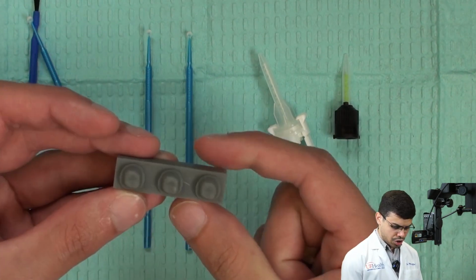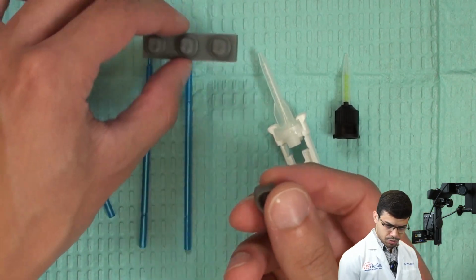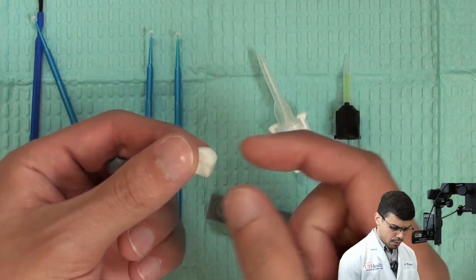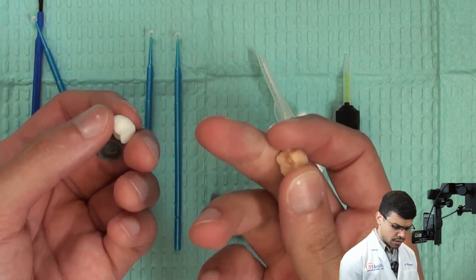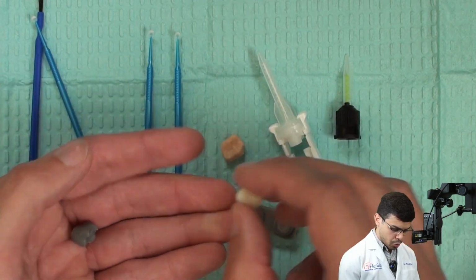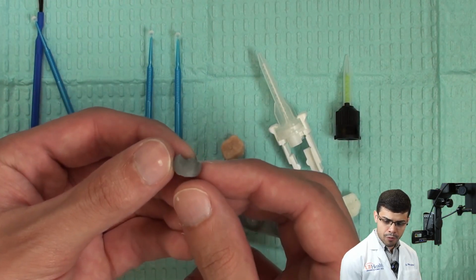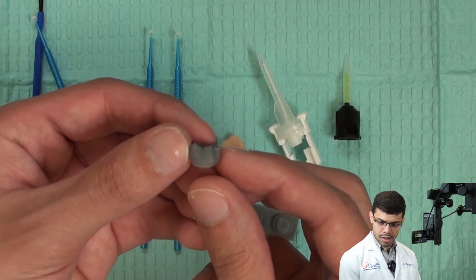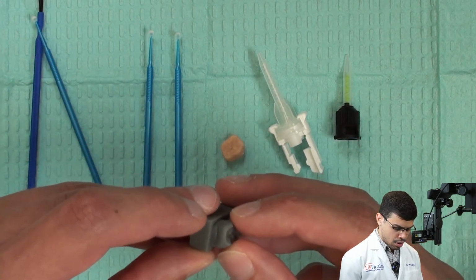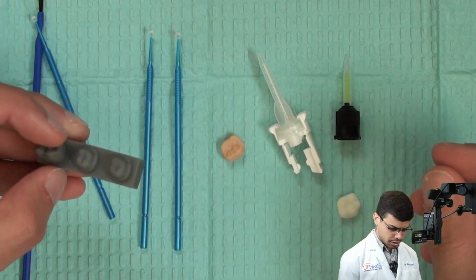You also receive a very interesting design here, which has 3 crown preps and 3 crowns. You have a gray crown, a very white one, and another one that is kind of tooth color, okay? For these crowns, we're going to cement these 3. The gray crown will represent the family of alloys in your decision tree, okay? This way you can choose whatever cement you think is best for that particular condition.